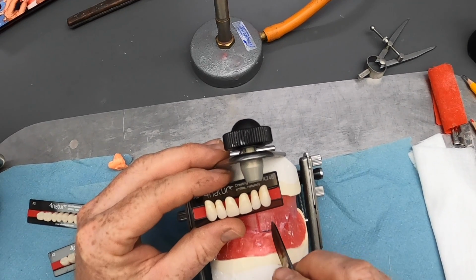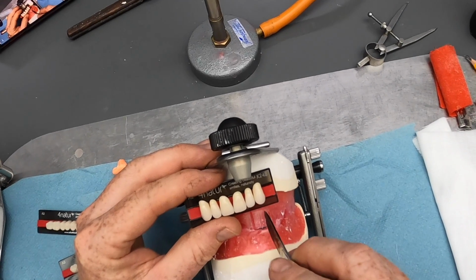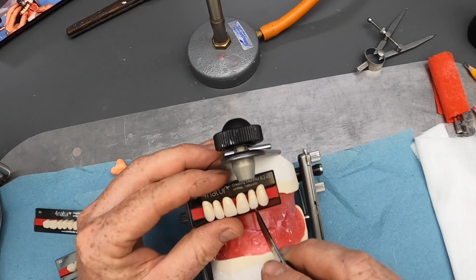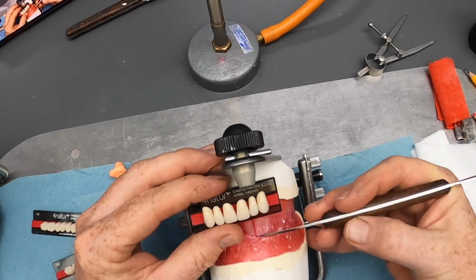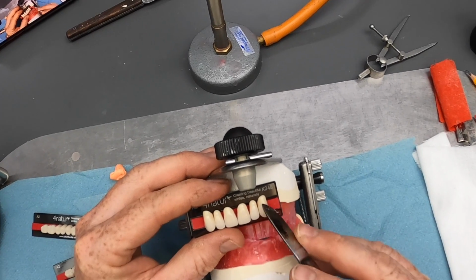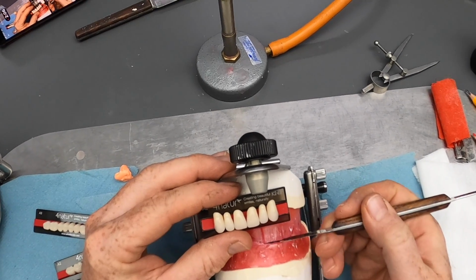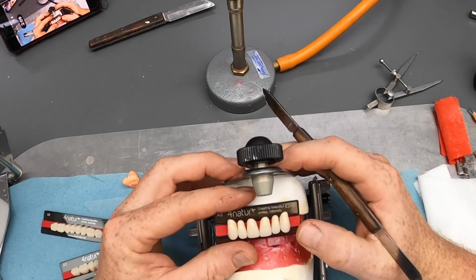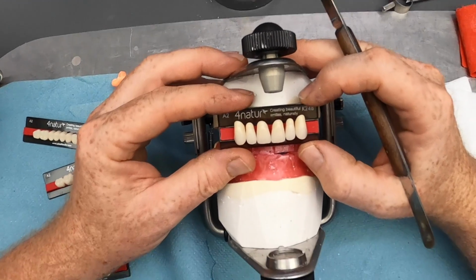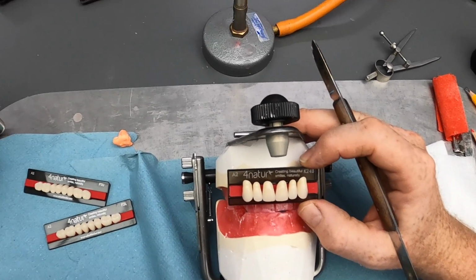The lateral is going to go slightly off, so rotated round on this patient's left by a few degrees, so the long axis of the tooth is just off central like that, but you should see that the incisal edge will still be parallel to the occlusal plane but set up a little bit, and then the canine can go bolt upright with the cervical third of the tooth being very prominent and the incisal edge again at the occlusal plane. This is just a bog standard setup really, so if we had photos to work to or some detail in the prescription, then we can work to those.